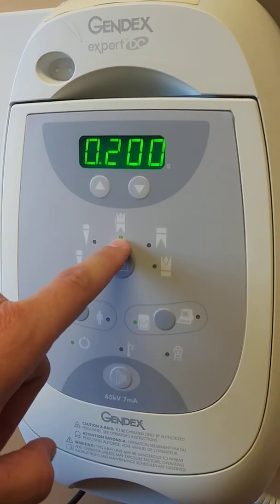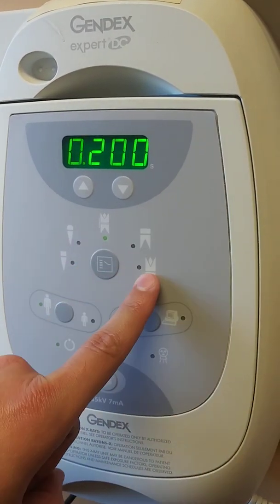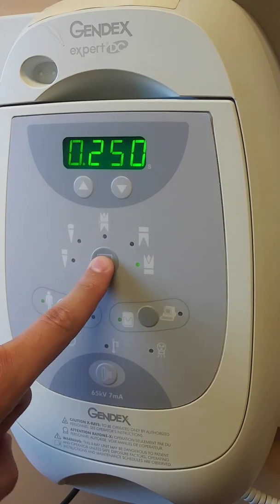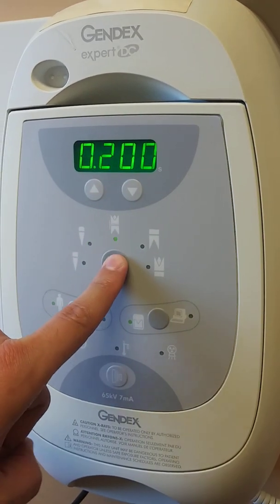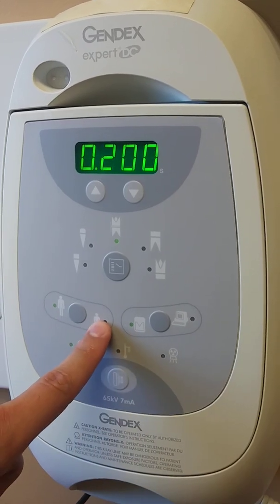One adjusts depending on which teeth and which type of x-ray you're wanting to take — whether you want to take a bite wing, which is indicated by a green dot, or you can take a PA, either a molar or an anterior tooth, and you just push the button to move it around. You'll notice too that your exposure pulses are changing as we do that.